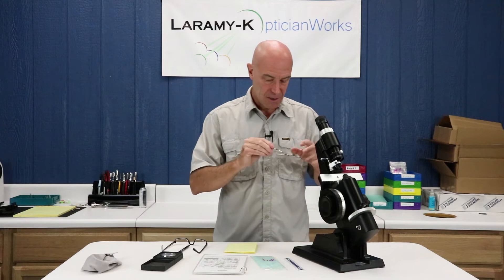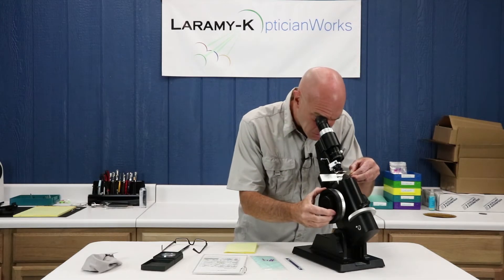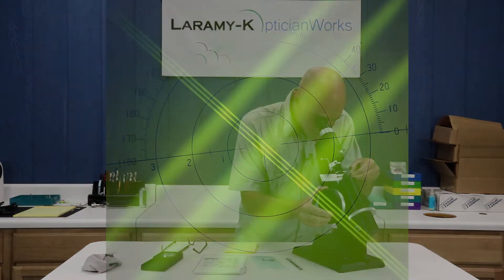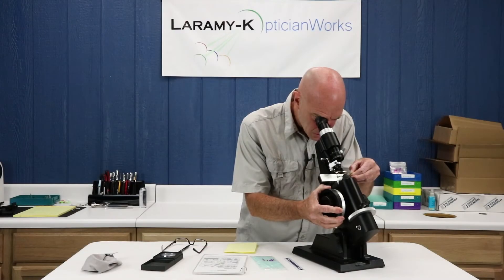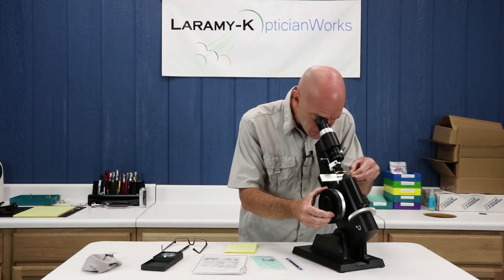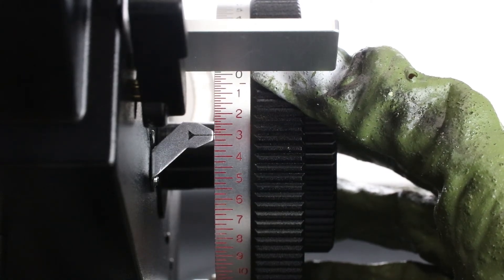Right lens — I'm going to start with my distance portion in the lens meter against the lens stop, just as if I had the glasses facing the other way. I'm going to rotate my power drum until I have good sphere lines in focus in minus cylinder form. It should be just about the prescription I was at, but it may be an eighth or a quarter difference, so just get the sphere lines — the axis doesn't matter, it's going to move. I've got those. Now I'll read my power drum and I have got a minus 3.00, and I'm actually going to write that down.